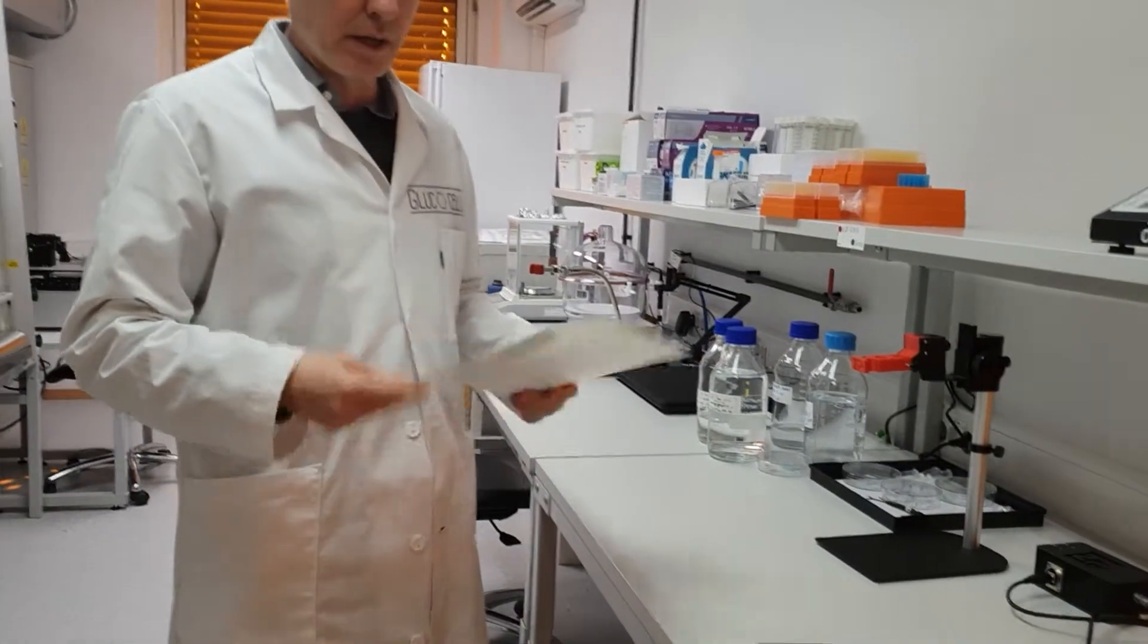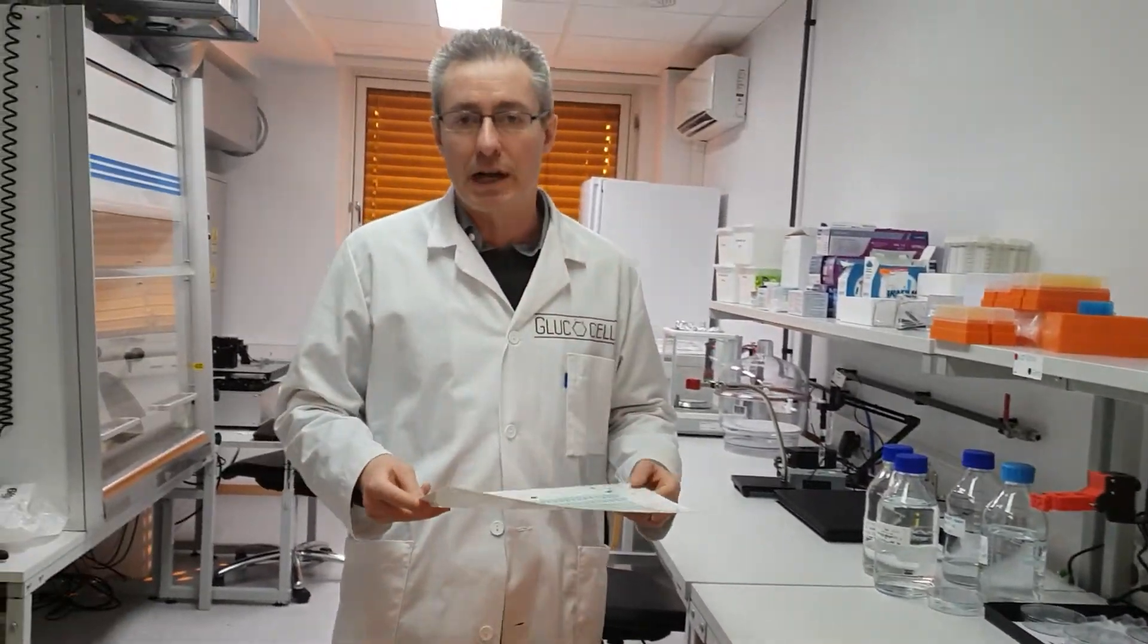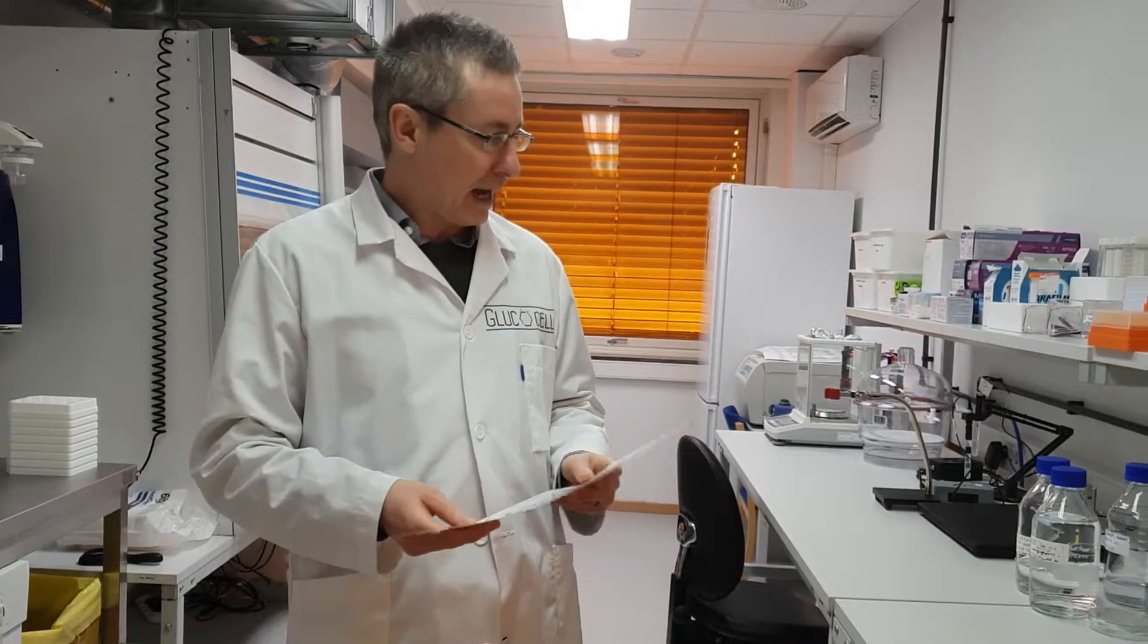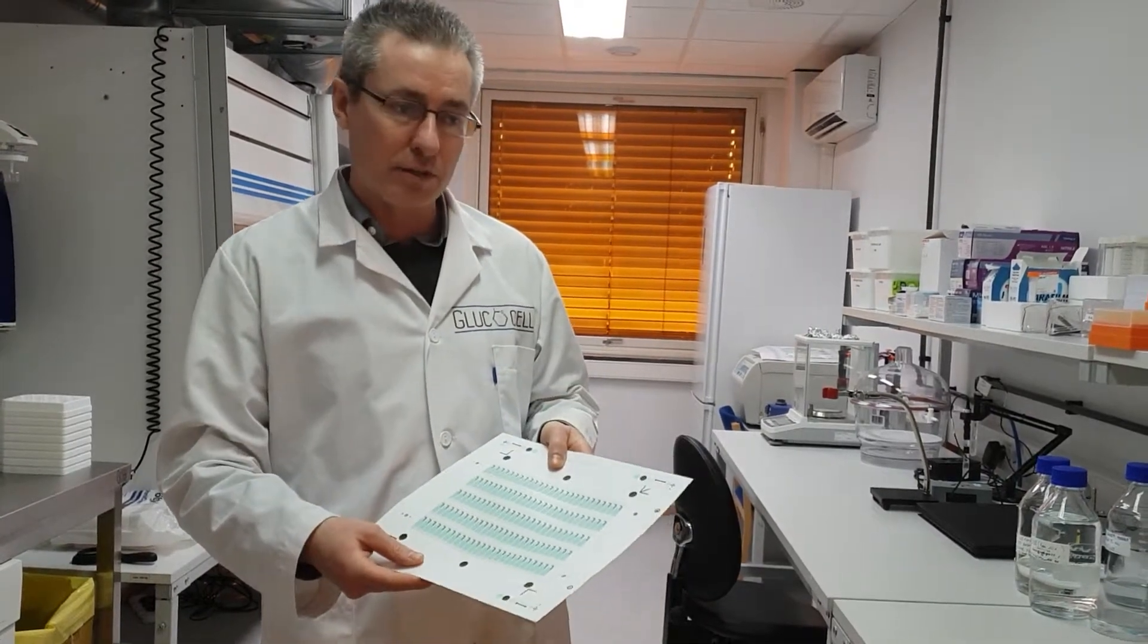If you're ever wondering how a screen printed electrode first appears, this is actually a sheet of those electrodes here.